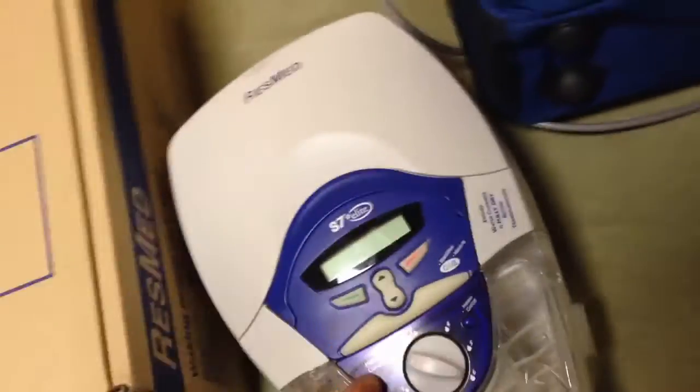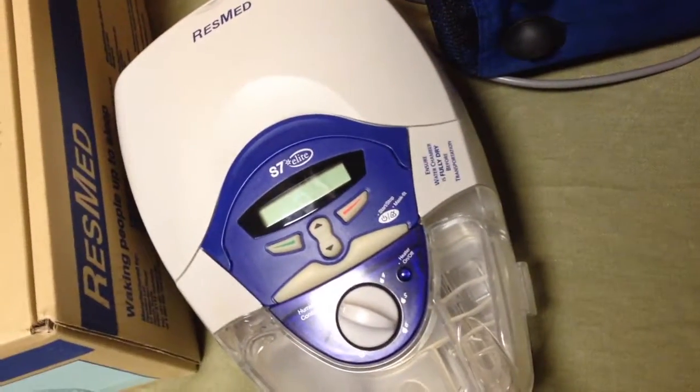So this is the head unit that does all the work — you hook up your housing and things like that. Nice backpack, and it's got the original plastic still on the logo, but it's for easy carrying in case you're going overnight somewhere.